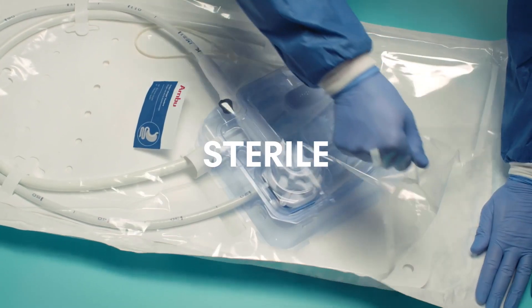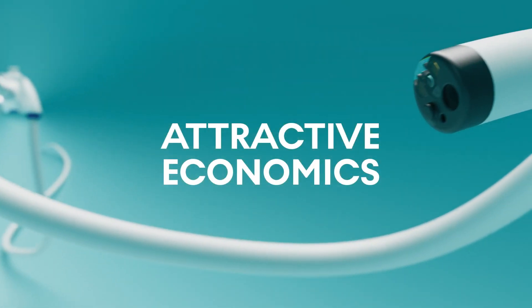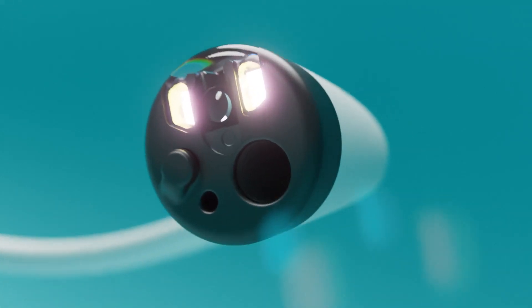We believe patients and healthcare systems deserve a solution which is sterile, which provides convenience, flexibility, and attractive economics. One that leverages the technologies of the future.